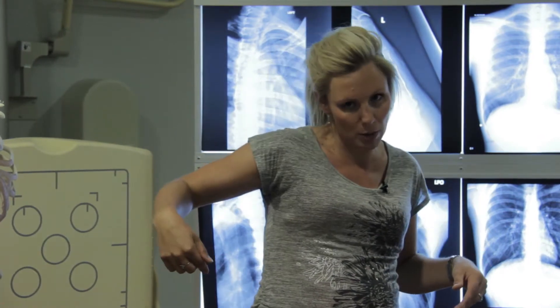Picture number one is always a PA chest. If the patient cannot stand, an AP chest upright if possible. We are looking for fluid accumulation and possible pneumos, so as upright as possible — even if you have to sit them in the bed — but ideally an upright PA chest with that BB on. Make sure you get that BB on the picture because that's your key image to determine what kind of series you'll be doing. You have some rules for upper ribs and rules for lower ribs, and that's what separates and makes them different.